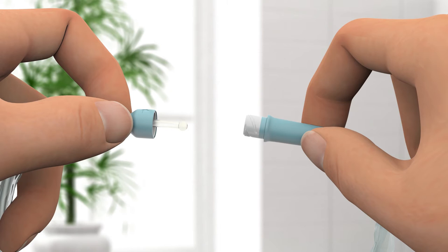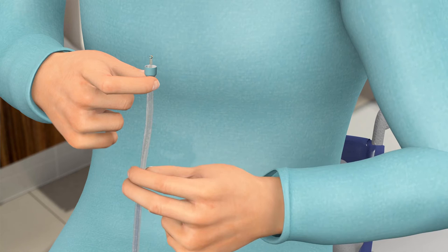If you do not connect to a urine bag, empty the liquid into the toilet. Glide your fingers towards the drainage end to empty the last drops of liquid.